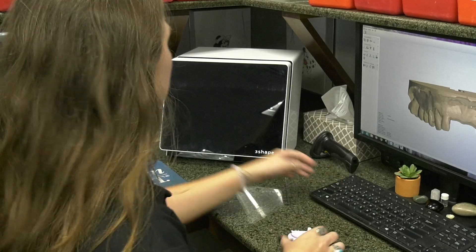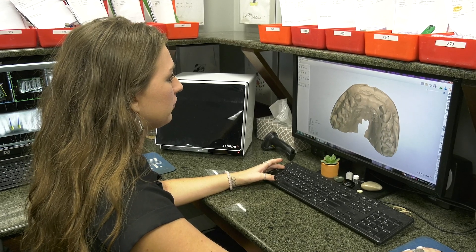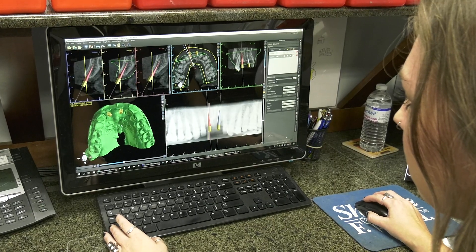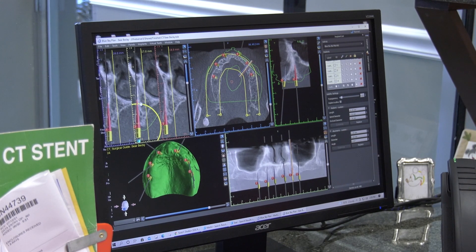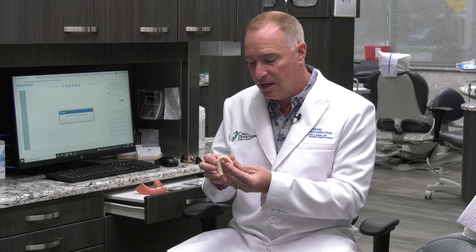What we're doing is positioning the implant in a 3D axis within the bone on your CT. When you send in your cone beam CT — and it doesn't matter what manufacturer the cone beam CT machine is — we use Blue Sky Bio and we merge the CT scan with either a digital impression or a regular stone model impression. We pour it up and we scan it. We merge the two together digitally so that we can overlap the x-ray scan with your model. Then we plan the case, put the implant analogs in the digital platform, and print the 3D model.